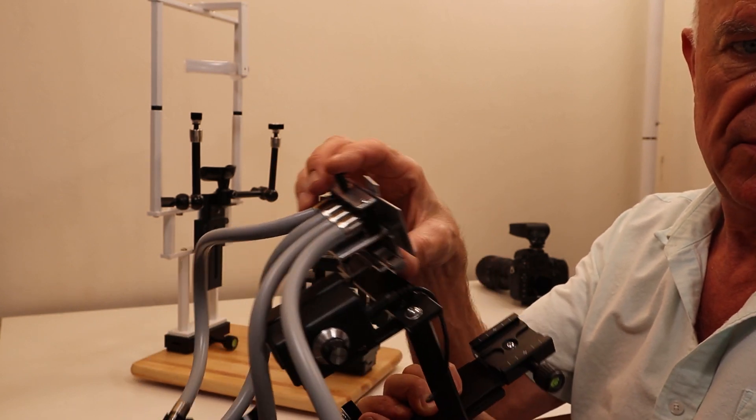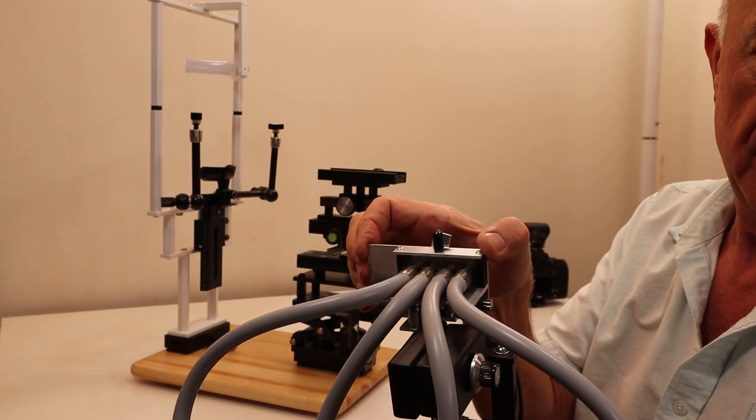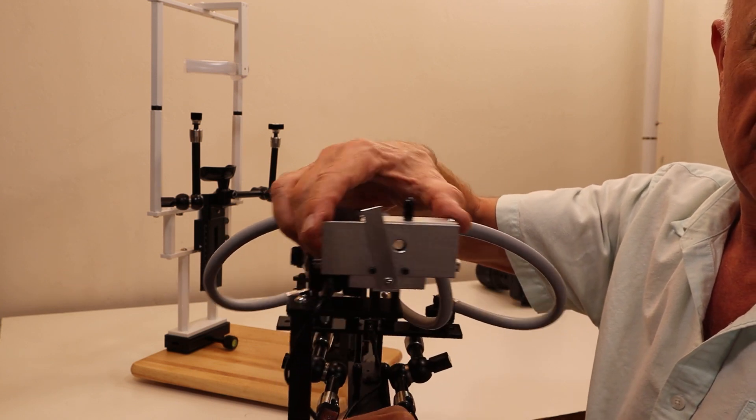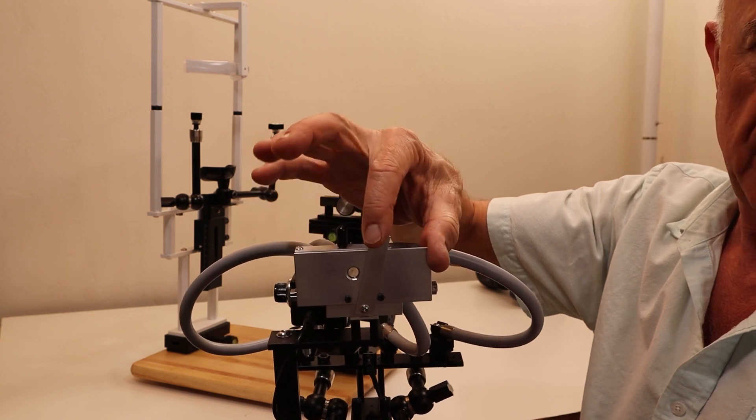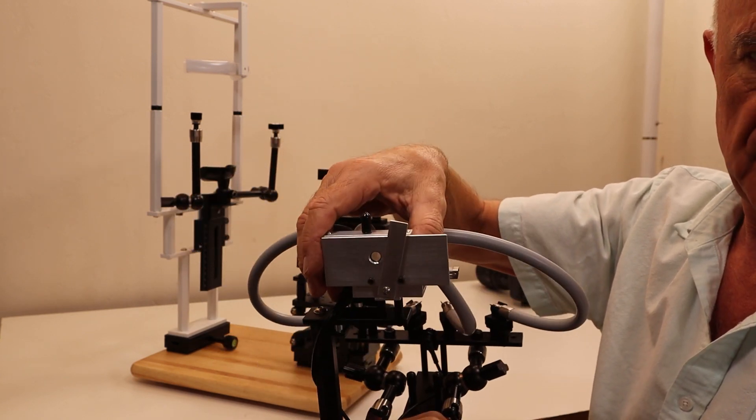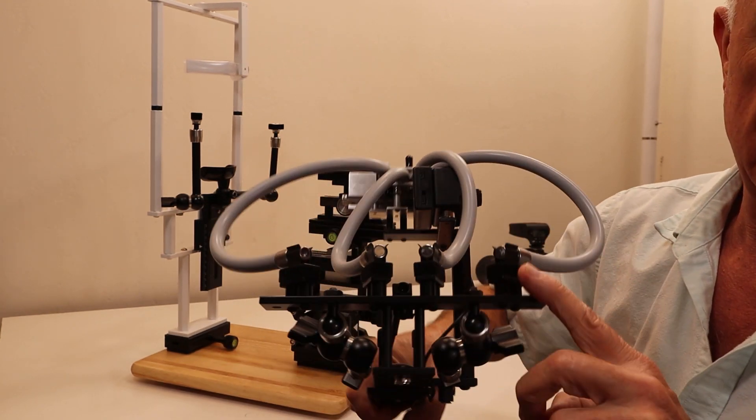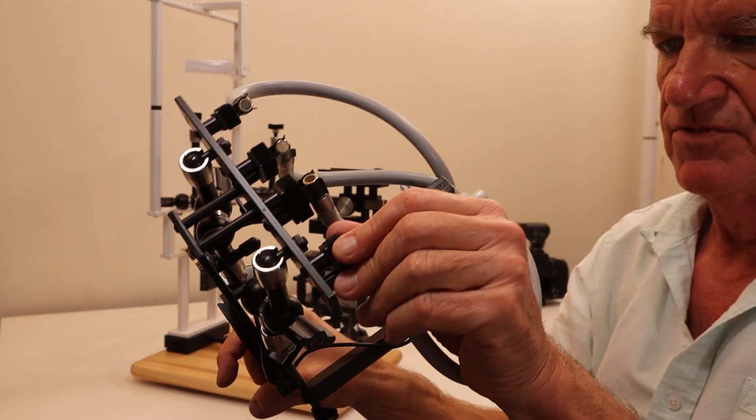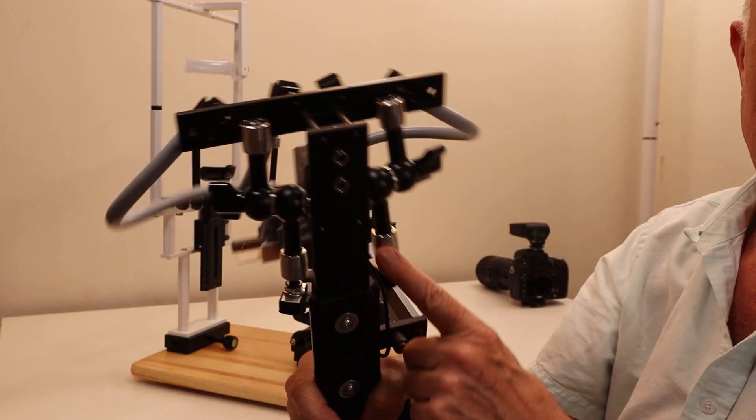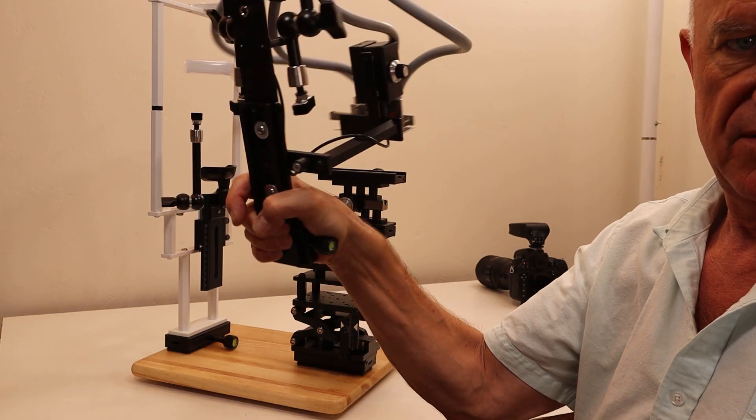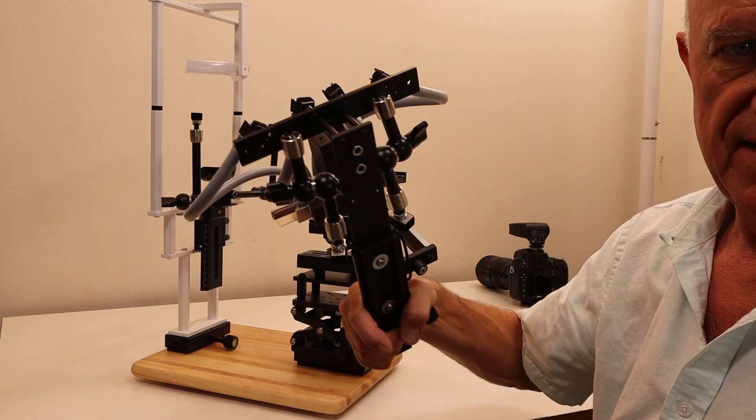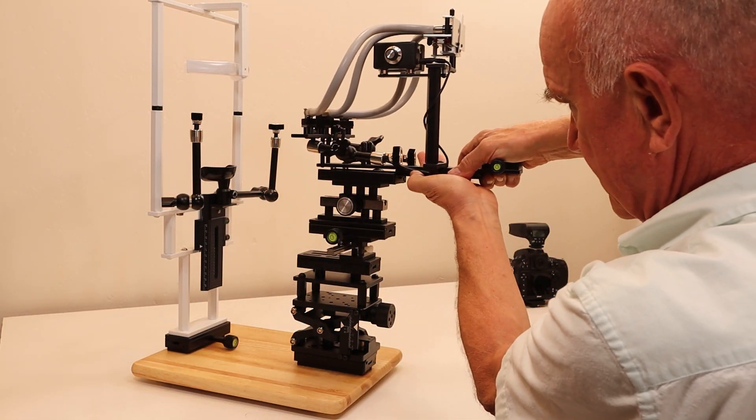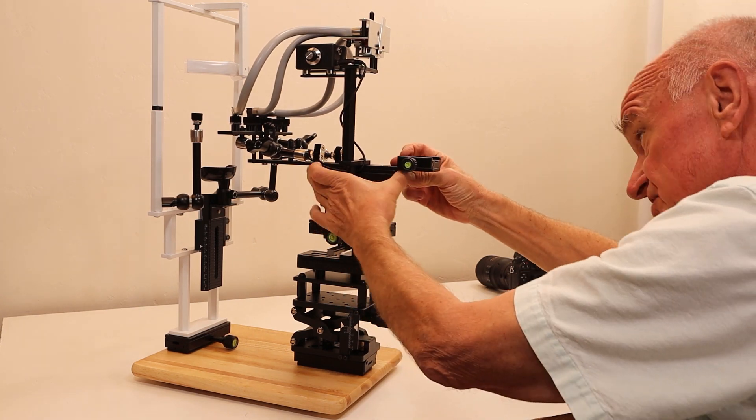This is a four-channel illuminator - there are mostly two-channel illuminators, but the four-channel allows you to choose between any two adjacent pairs of light guides. Within each pair you can choose both or one or the other. The newest feature is that the light guides are mounted on a magnet and can be easily removed and repositioned. It has two magic arms currently in storage position. You slide this onto the top, get it flush, and tighten.